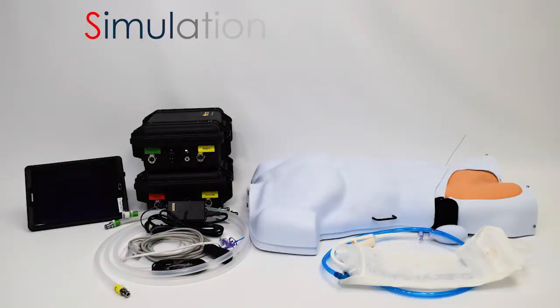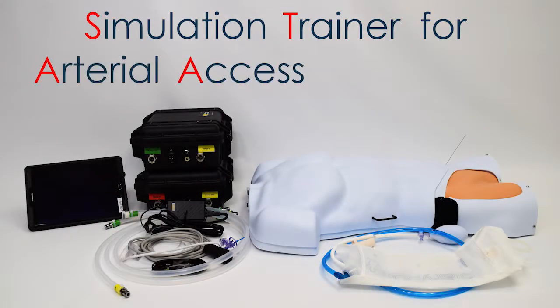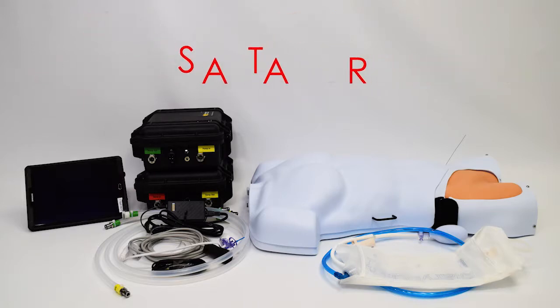Thank you for using Prytime Medical's simulated trainer for arterial access and REBOA, or as it's more commonly known, the STAR. This video will instruct you on how to set up the STAR.